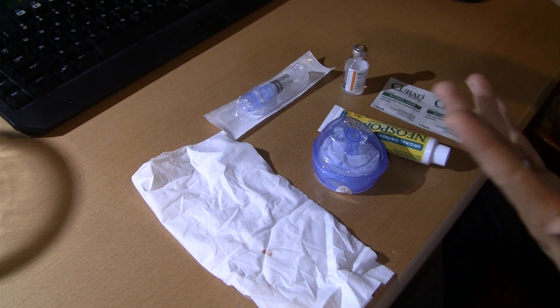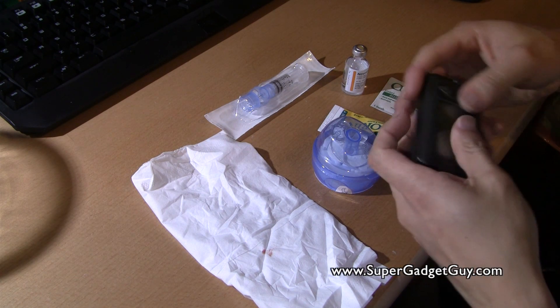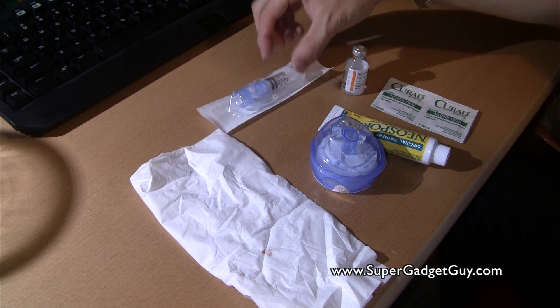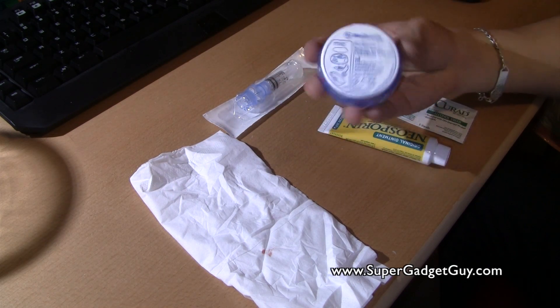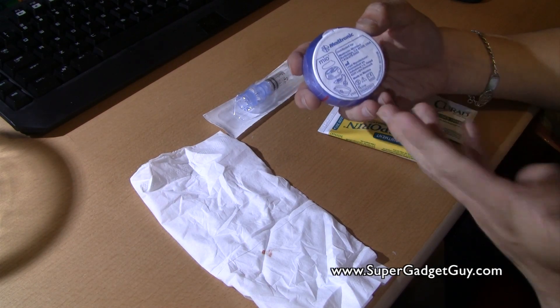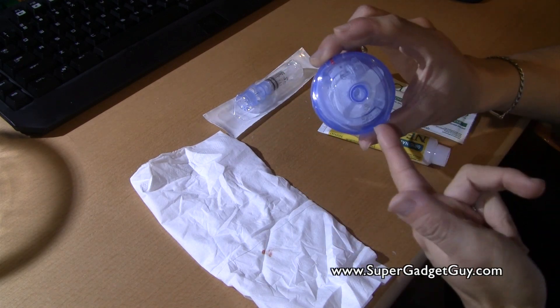What I have here is the Medtronic Minimed 523 — or the 532, anyway — the Minimed pump right here, and I have the reservoir. This is the 180-unit reservoir, and this is the Mio infusion set. This is the one with a 6mm cannula, and this is the blue one — they have different color choices, they have pink and clear. I choose blue.